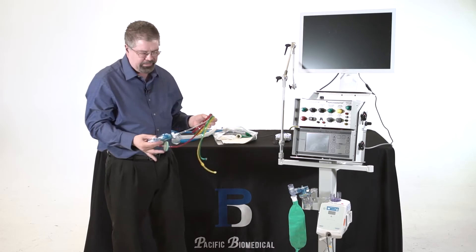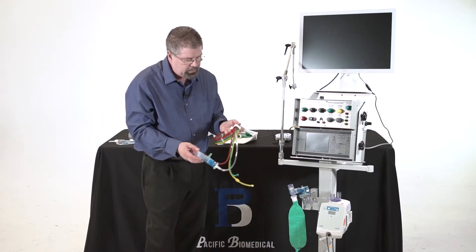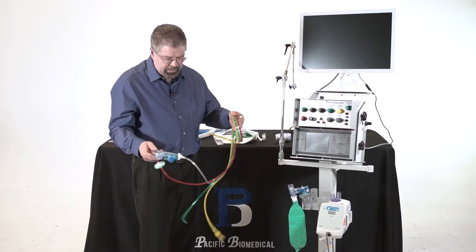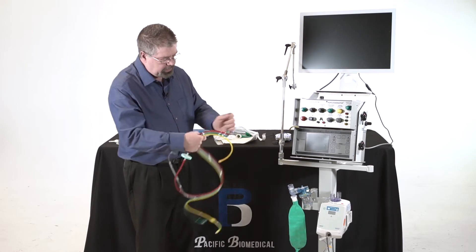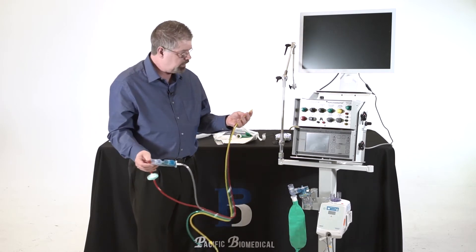Now this is the phasotron or the valving mechanism and then this is the tubing harness. And we're going to take this piece of paper off. The company did a very nice job of color coding this tubing harness and so I simply match color to color.